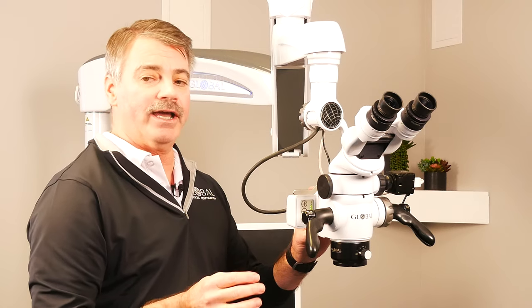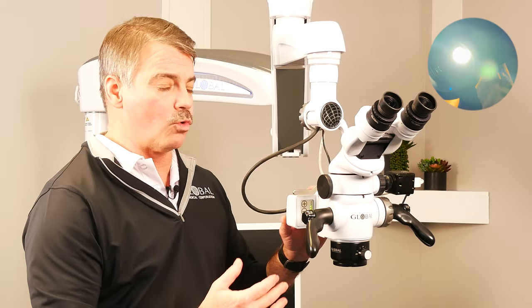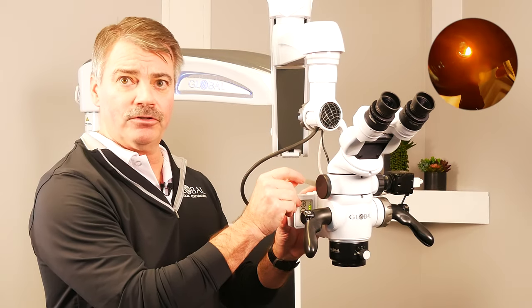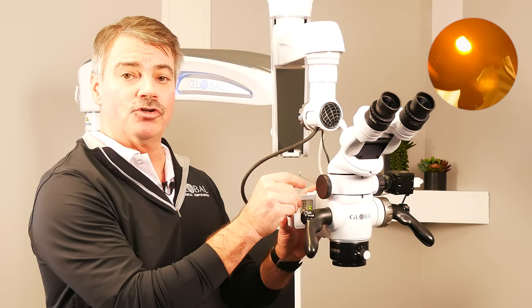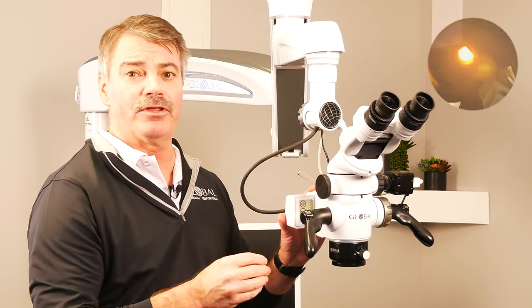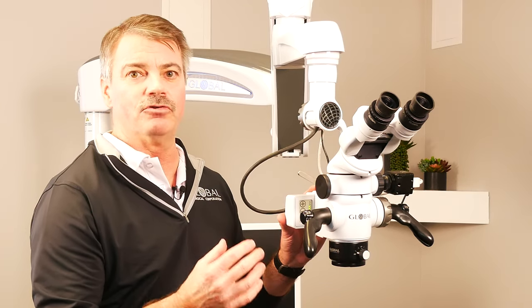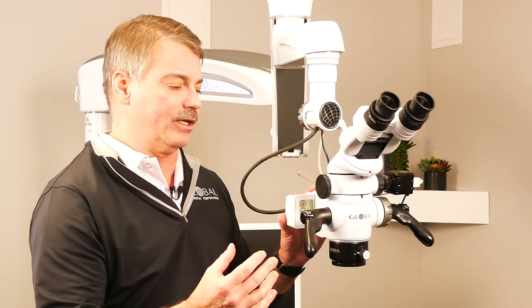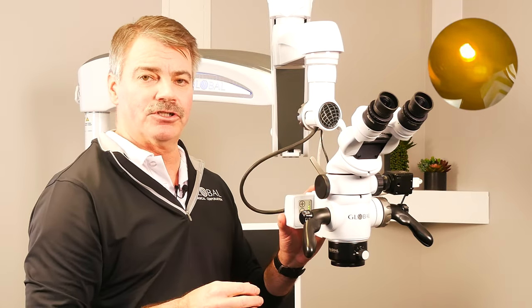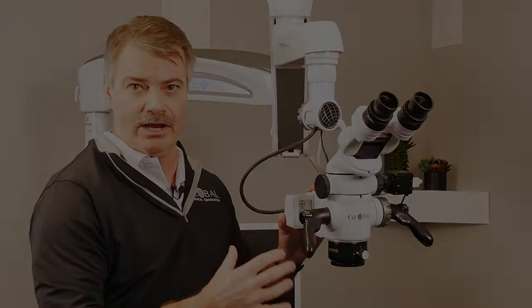It also has standard filters: a clear filter for normal everyday use, an amber filter so you can switch easily when working with a composite that you don't want to cure too quickly, and a green filter, which is used mostly for surgeries to isolate vascularity.